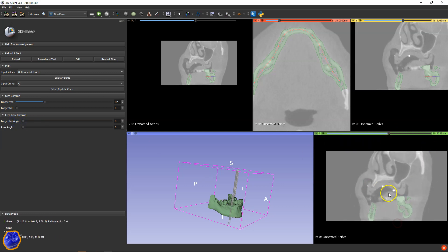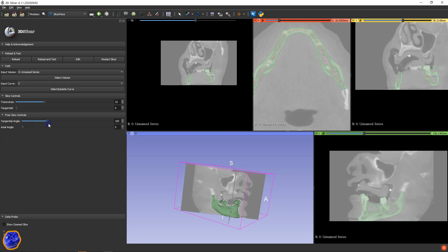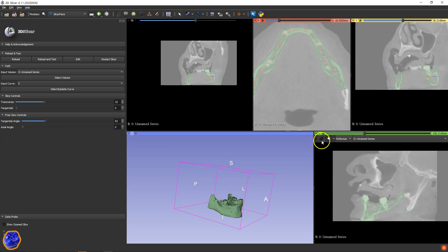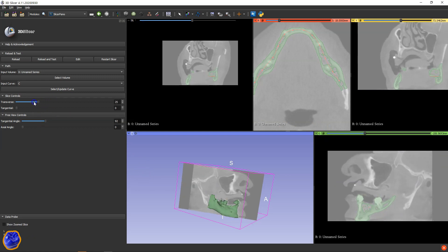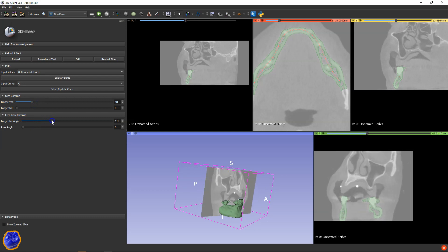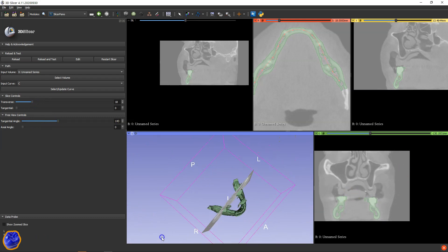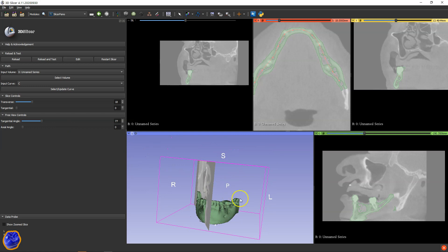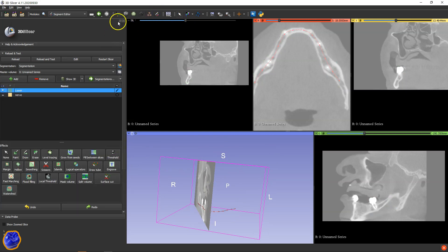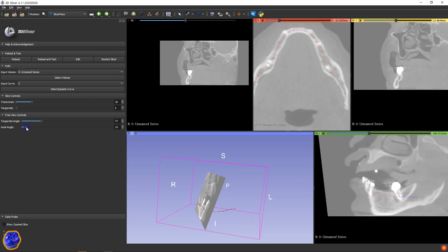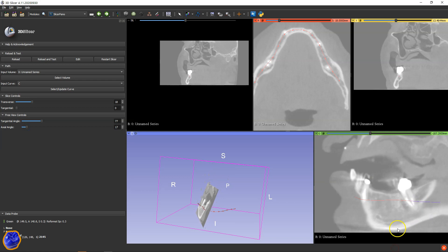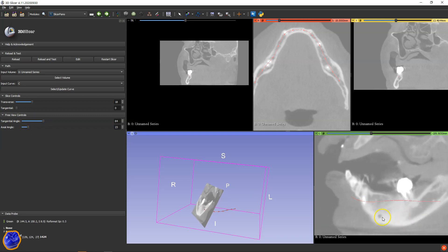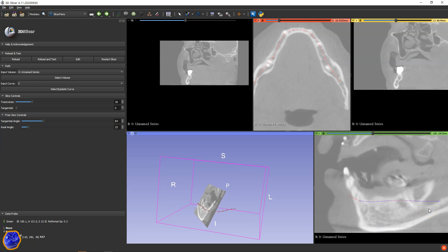So with that being done, I will only view the green slice. Only work with the one green slice. By doing that I need to disable the other slices and only enable the green slice. You'll see only that specific slice is moving. I find that sometimes easier to do — it's a bit less confusing. Then we're going to hide the other one so that we get a good visual of the CBCT scan, and try and position this at a specific angle that you can view the nerve canal where it exits along the bone.